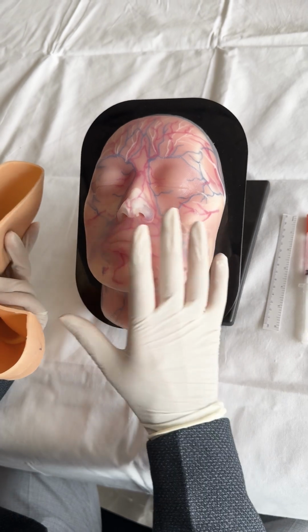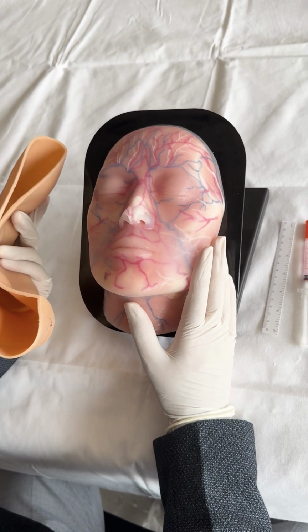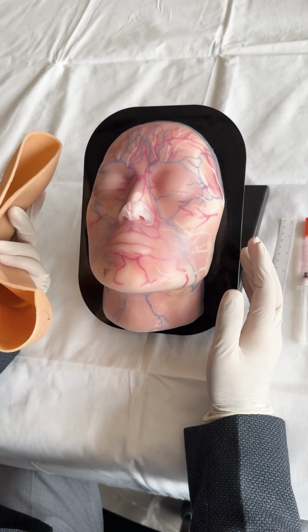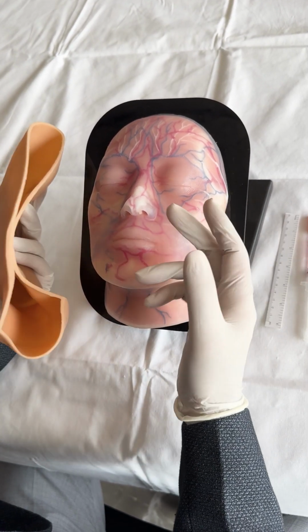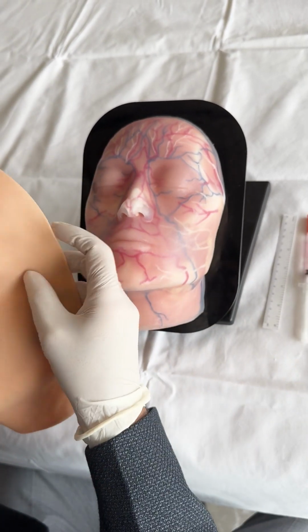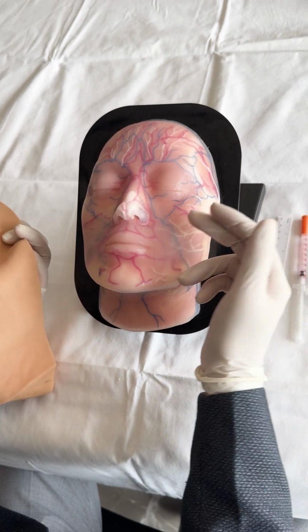The main objective of getting trained on FaceSim is to learn how various injectables can be given on a human's face without making any or minimum errors. The major advantage of having the vascular and the nerve supply on this face is that while practicing the injections, one can locate where exactly his/her needle is pointing after the markings are done on the skin.